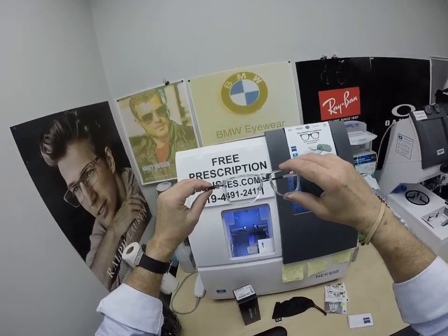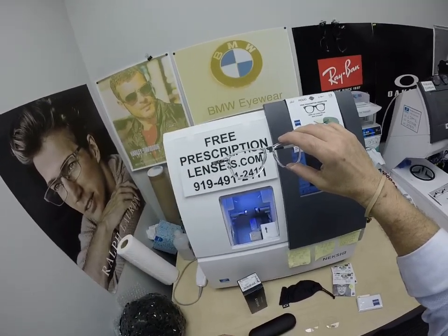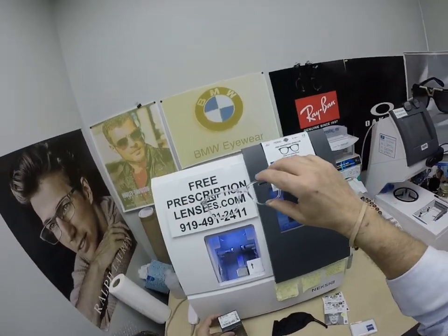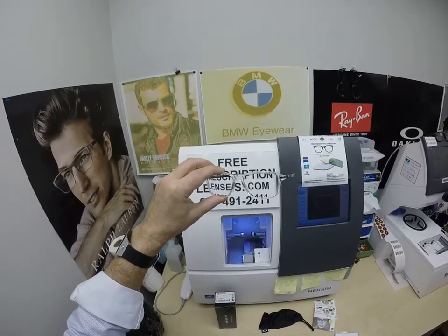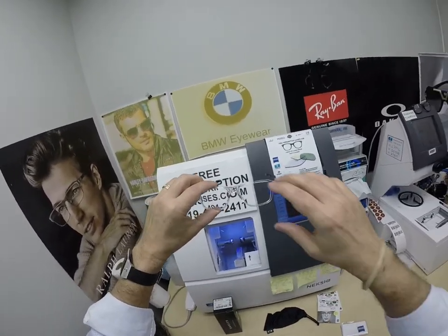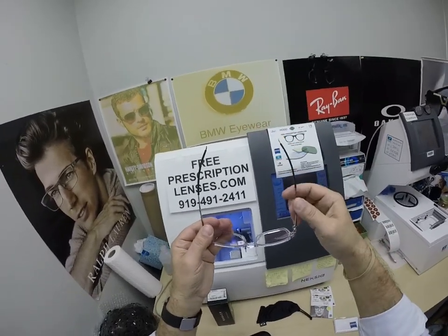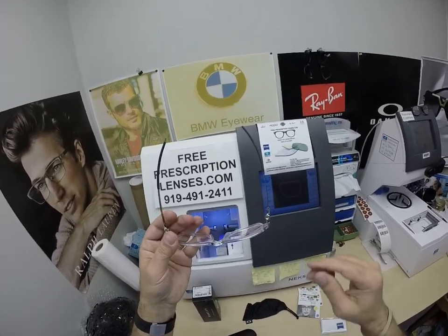Van in Cleveland, Ohio — thank you so much for your service to this wonderful country, and thank you for the purchase of the Oakley 8166 Wheelhouse. This is a great frame. If you're unsure about what frame to go with, this is classic styling, classic looks. It's got a built-in wrap curvature.